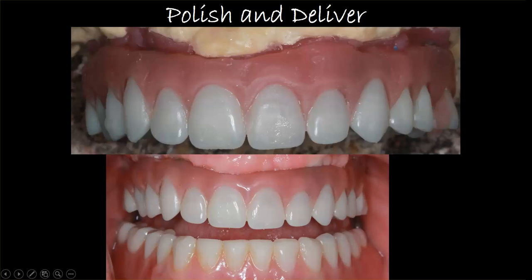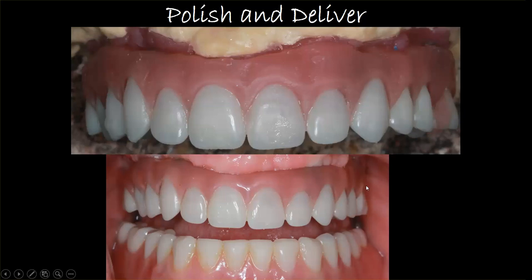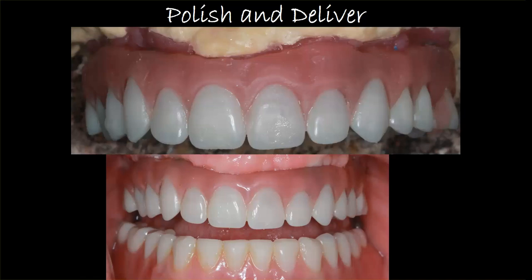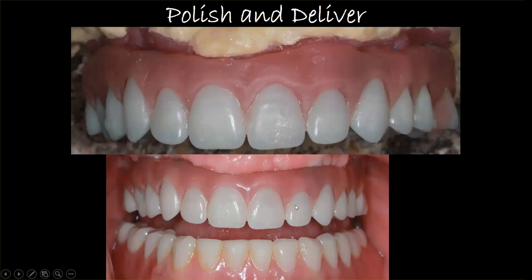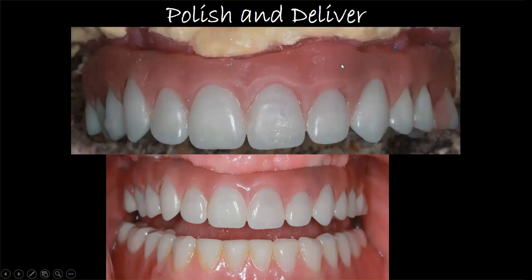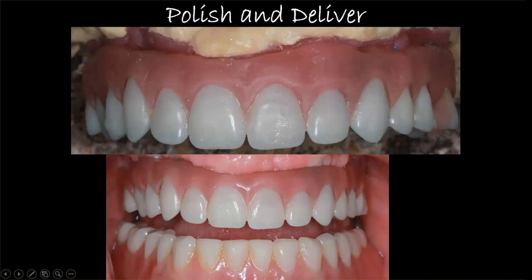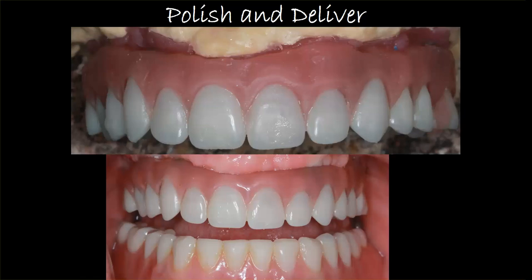This is a different case but processed by the same method — it was actually a hybrid denture — and you can see the acrylic turns out extremely nice and dense. The goal is to complete a denture in two to three visits, processed completely in-house. The only costs are the cards of teeth, which range from two to twenty dollars a card depending on quality, plus a little acrylic and putty. At maximum, using cheap teeth, this is about ten to twelve dollars an arch for a digital denture with an extremely nice outcome.